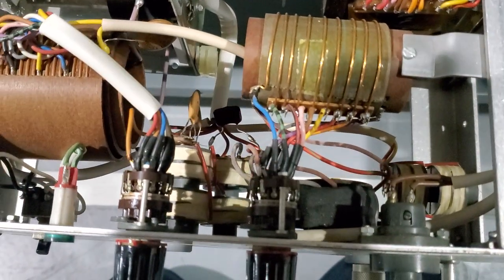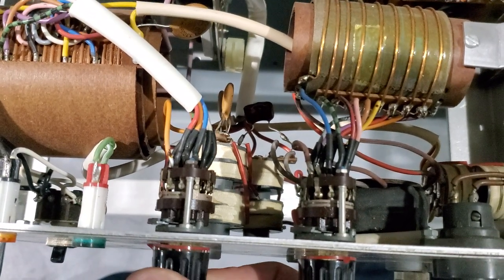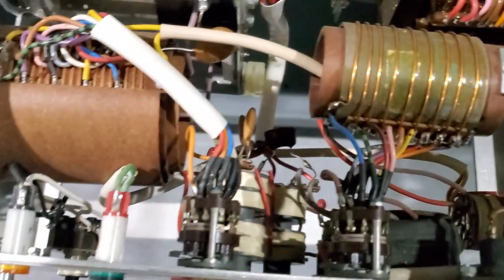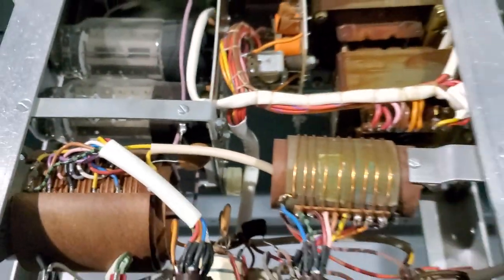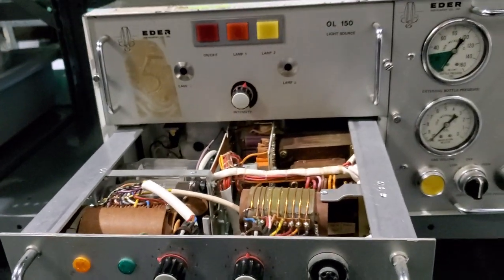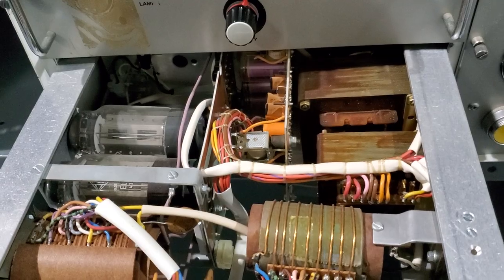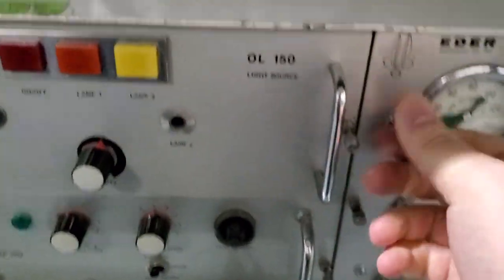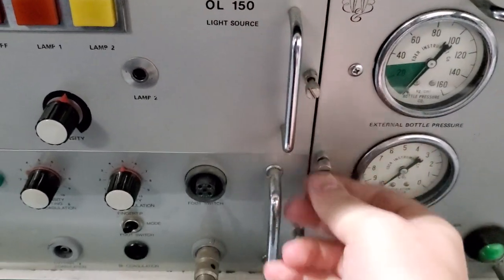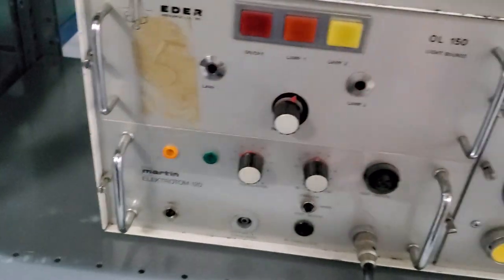Look at the back — all the solder connections are really nice. These contacts are still fantastic, there's no corrosion. It's been kept in really good condition. That is 120 watts max — one of the earlier models of ESUs — and this guy is probably fully functional. I like that there are these little access panel screws on the front, definitely a retro thing, but I really wish they kind of built them like this nowadays. Makes it really easy to service.